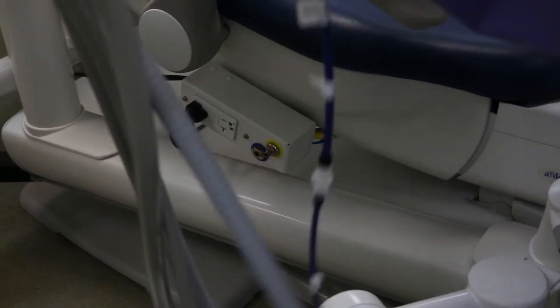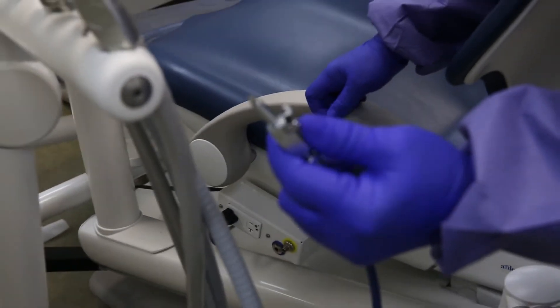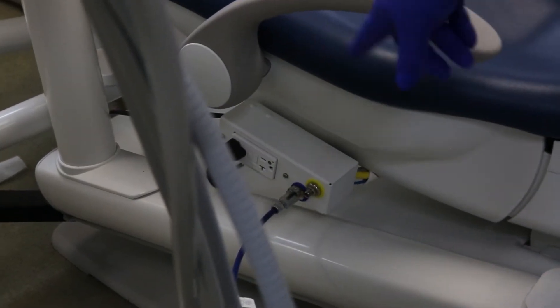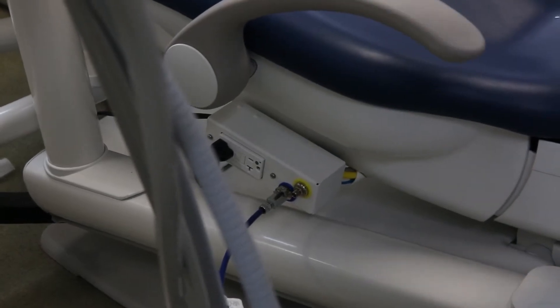Once you connect it, there's a quick connect here. You use this lever and you have to do it quickly. You're going to go in, drop this down, and push in until it catches across the flat top of where you insert it.